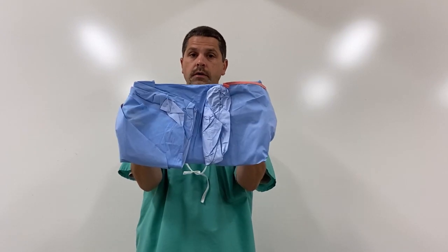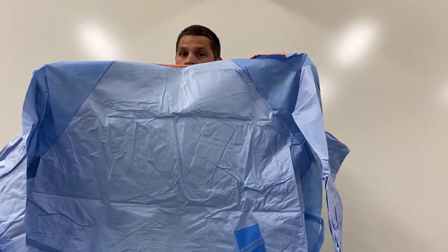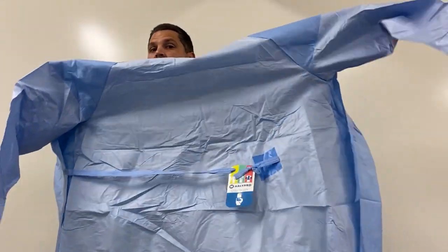So I'm in — I grab, I open up my hands, and it falls down. Once it does, the place where my hands are become the sleeves, so I can pull this down and I've got it on. Ideally in the OR, somebody would take this Velcro and fasten it around your neck so it's not trying to come off. The key thing to remember is to keep your fingers inside of these cuffs so that everything out here is still sterile.